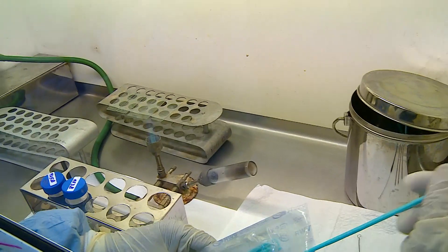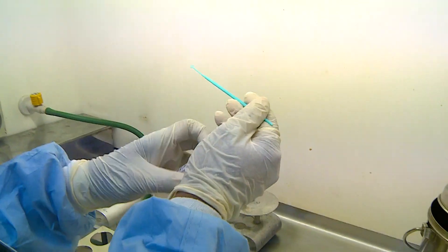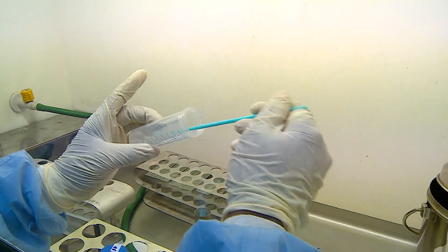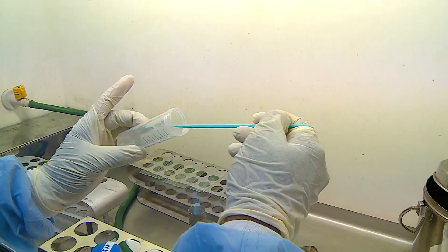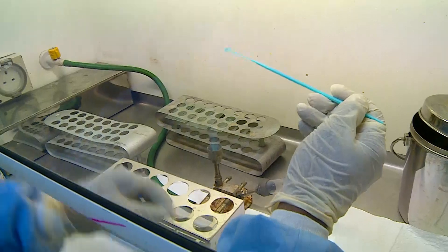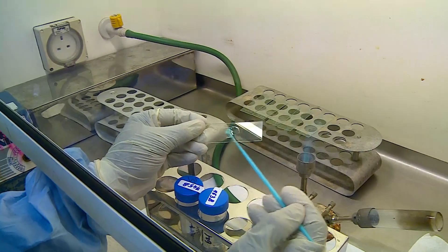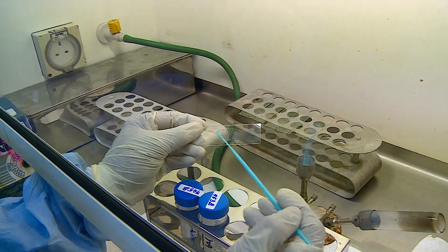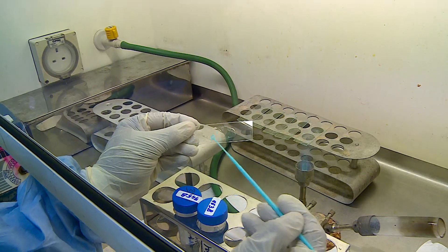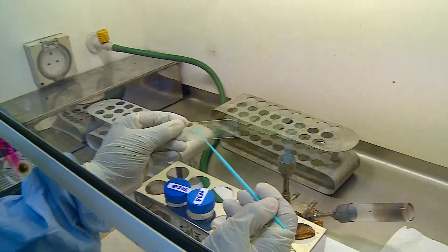Now here we are going to make a smear using the disposable loop. A full drop from the mucopurulent portion of the sputum sample is taken on the loop and it is spread on the slide. Gentle heating of the slide facilitates good quality smear making, and the smear is made using concentric circular motions at the periphery. This ensures that the bacilli in the sample are uniformly distributed in the smear.